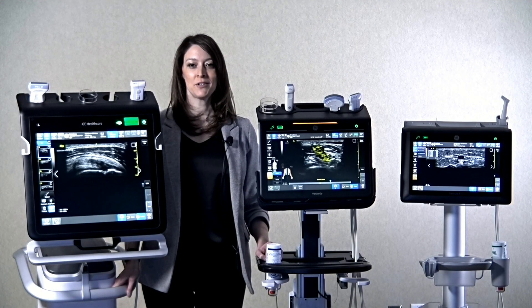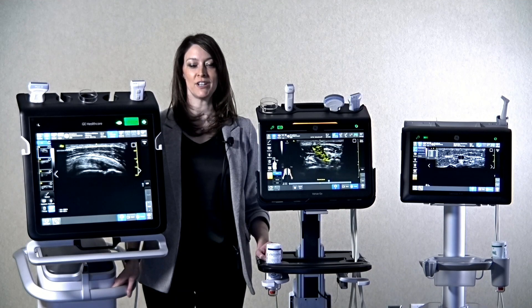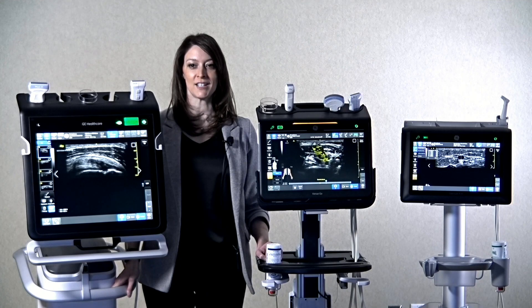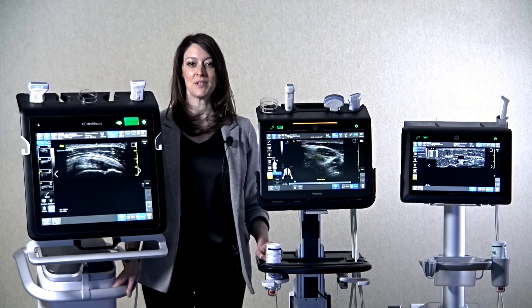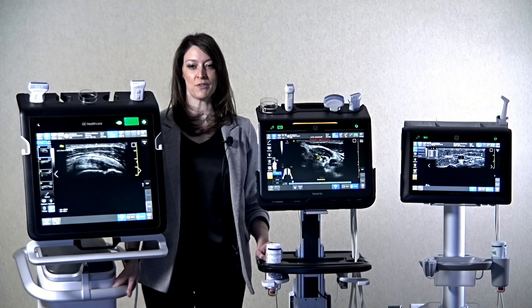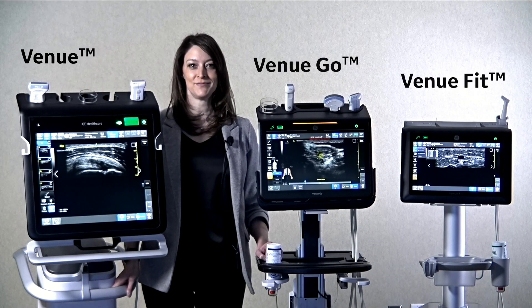Hi, I'm Erin Sahlwasser, POC Clinical Application Specialist for GE Healthcare. I'm here with Elizabeth Erickson Newman, and we're excited to introduce you to the new MSK toolkit feature on the Venue family of products for Point of Care: the Venue, Venue Go, and Venue Fit. Let's get started.